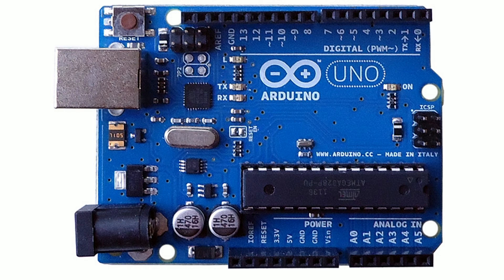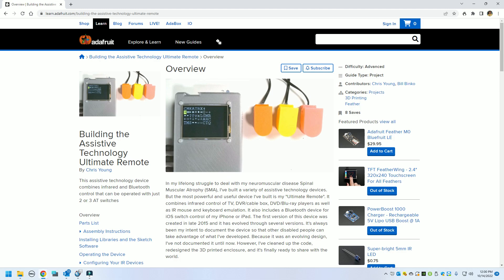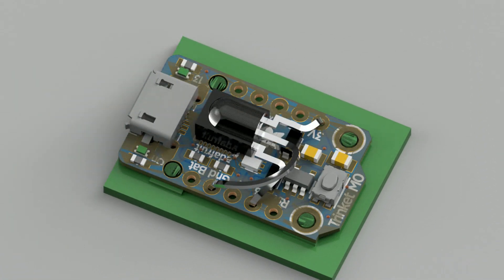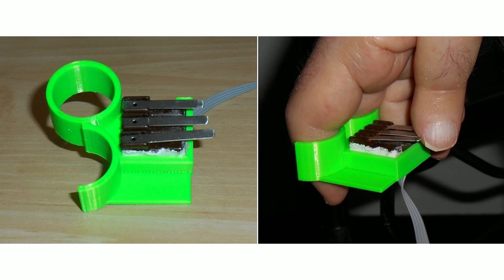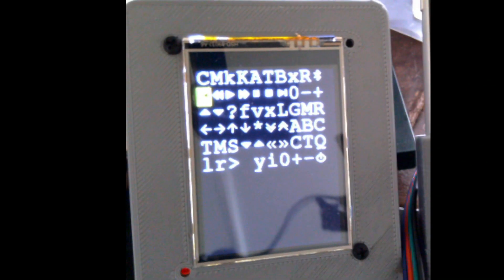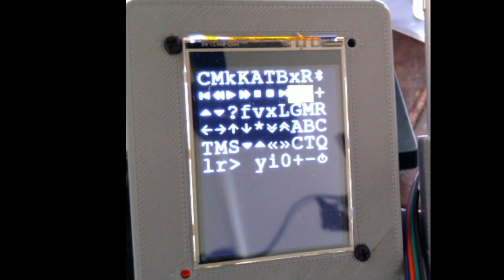Back in 2012, I began experimenting with Arduino microcontrollers, and I focused on building infrared remotes so that I could more easily control my TV, cable box, and other devices. The culmination of this project was what I call my Ultimate Remote Control. It not only allows me to control the TV, cable box, and DVD player, it can also emulate a mouse and a keyboard on my PC through a small dongle that receives infrared signals. The Ultimate Remote can be controlled by any standard AT switches, but I use a device I call a sling ring — a 3D printed ring with three micro-switches. I hold it in my right hand and push the buttons with my thumb.